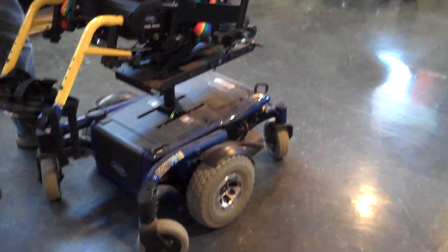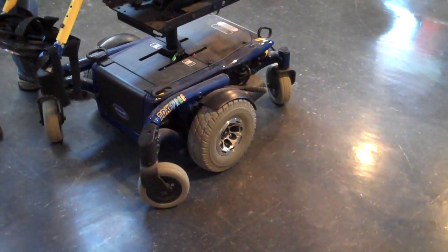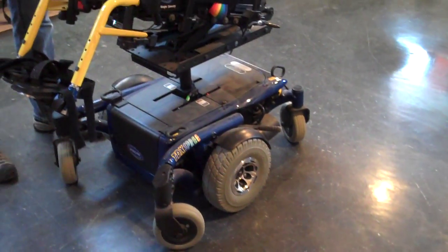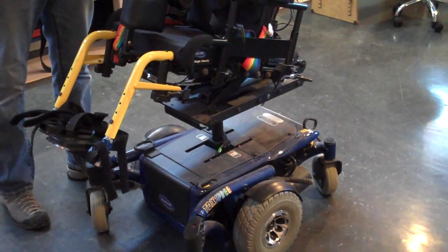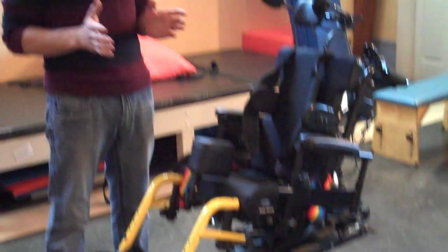Having a mid-wheel drive is much more intuitive, so when the child turns right, the chair turns right centered on the child themselves. It's much easier to learn to navigate tight spaces with this. Your spinning diameter is half of what it would be otherwise, making it much easier to deal with smaller spaces.